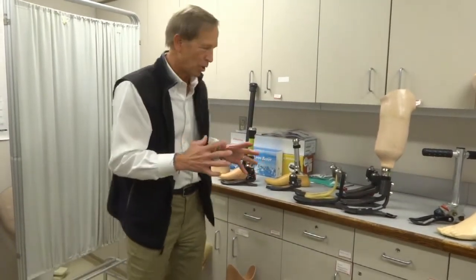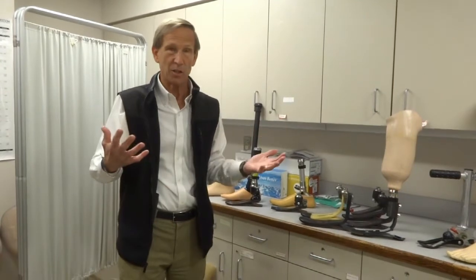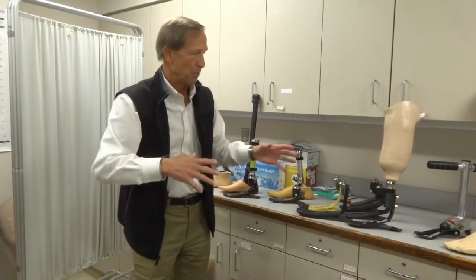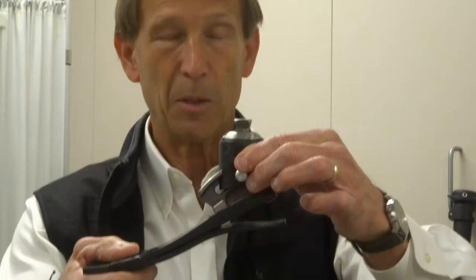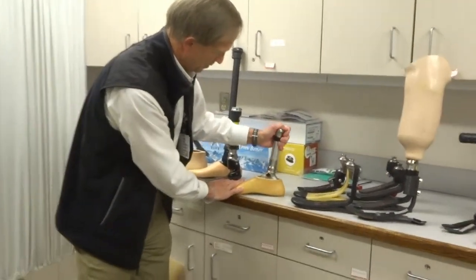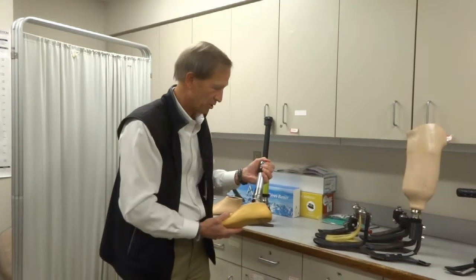There's another different category we haven't talked about: heel height adjustable and hydraulic ankles. There are people who like to wear a different heel height — women often wear a higher heel for social or fashionable activities, and even men wearing work boots or cowboy boots may need to accommodate a higher heel. Most prosthetic feet won't adjust, but specific prosthetic feet will. This particular one, when you push the button, slides to accommodate a heel about two inches high, then slides back down to flat. These are low to medium performance feet, but for some patients the heel height adjustability is incredibly important.